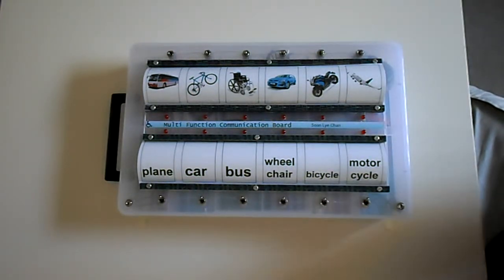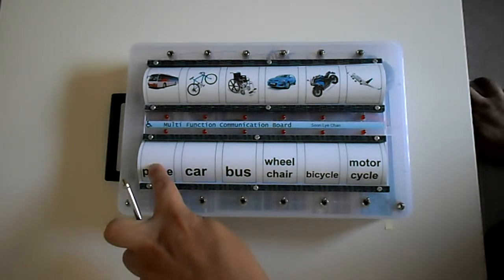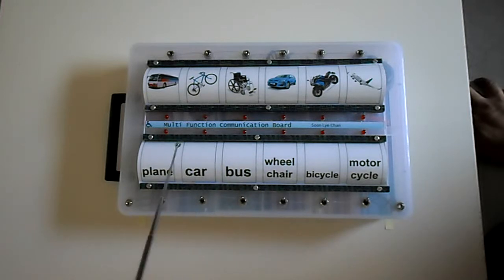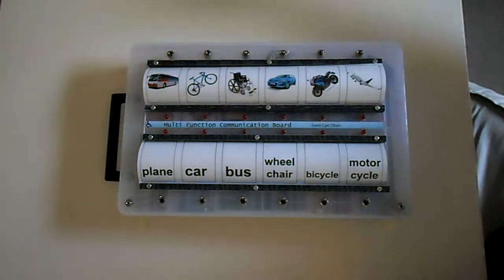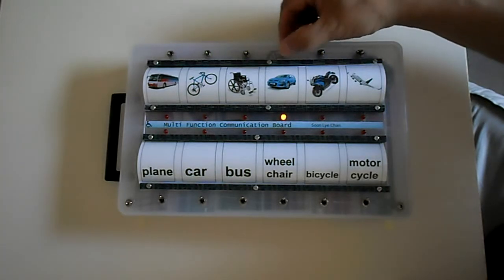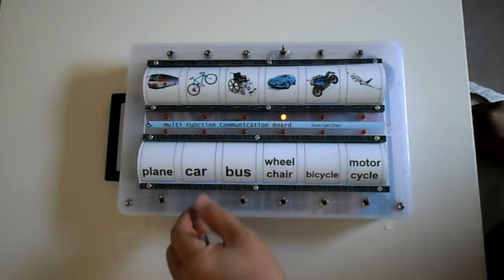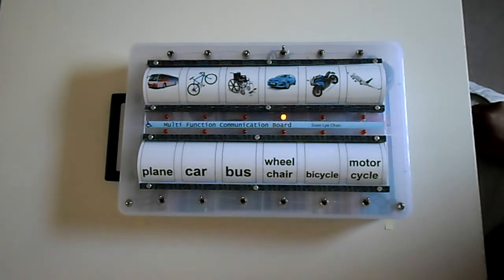So in one application, a child who may have a head pointer, or with his finger, could point to a plane, to the words, or with a pointer. The teacher or the helper on this side, for example, would turn the light on a car, and he will acknowledge with, if he could use his hand, he will say a car. If not, it'd be a pointer.